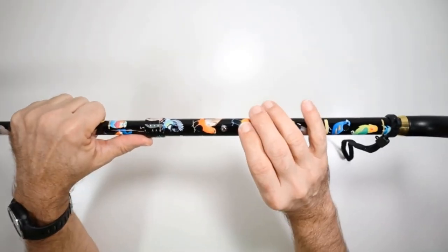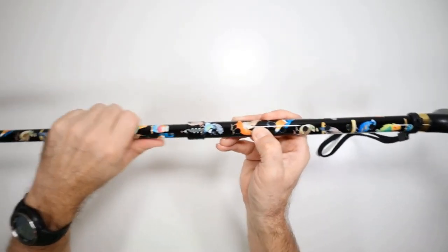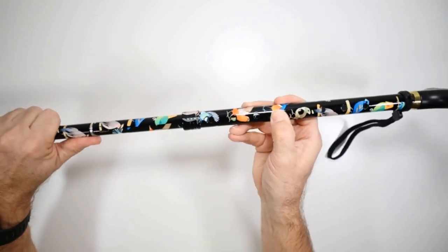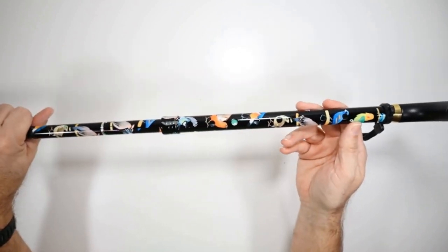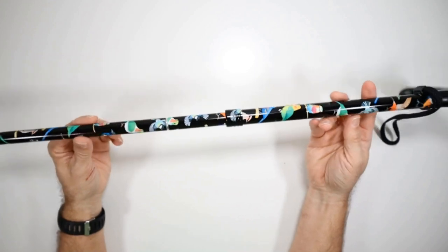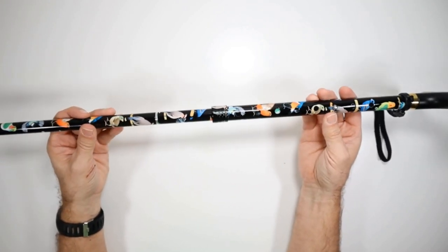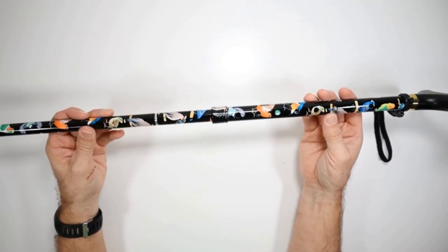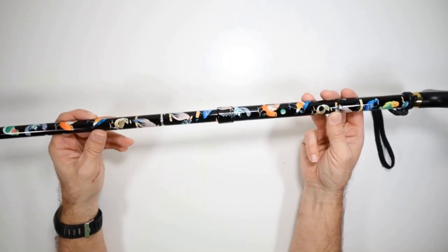You can also adjust this cane to the height you need it using this push button right here, and then just lock it into the proper place. It gives you the proper height. And this cane fits a wide range of people. It'll fit everything from five foot two to up to six foot eight. So it's really good, especially for super tall users.